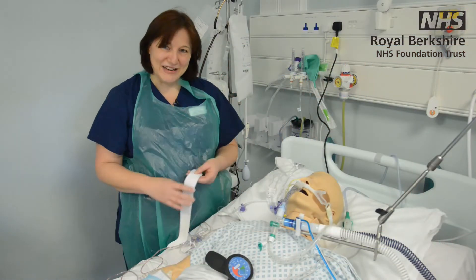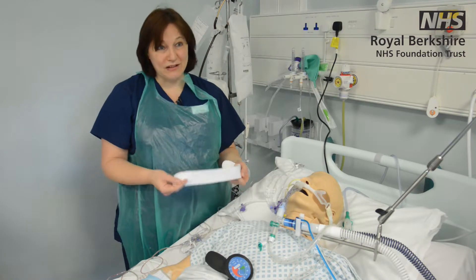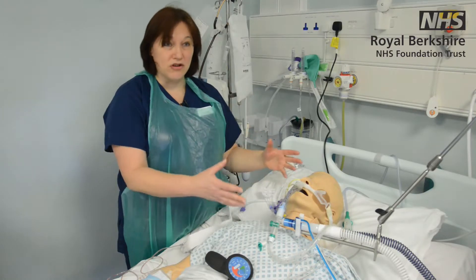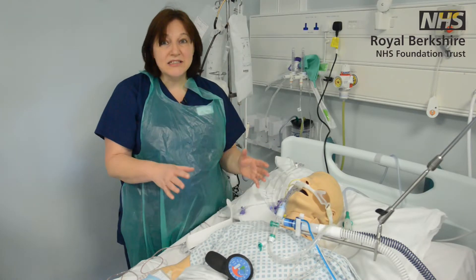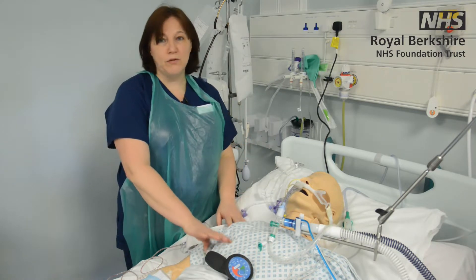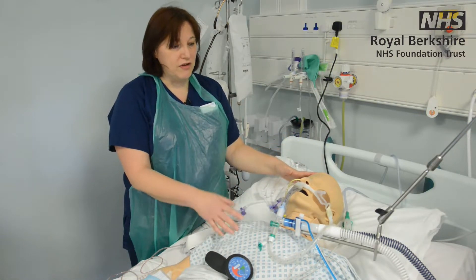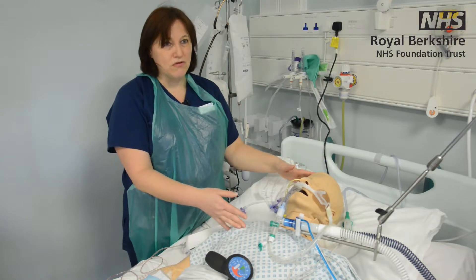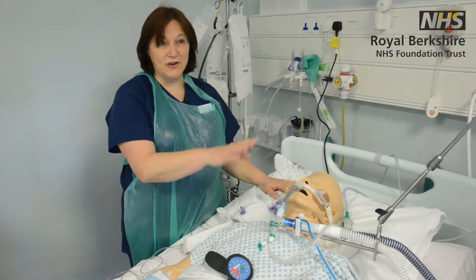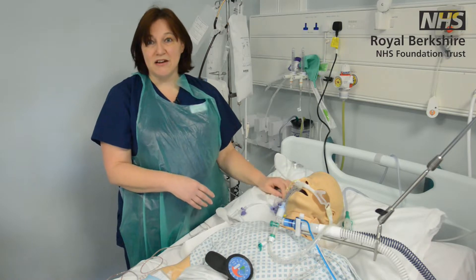Welcome back to our online session. I just wanted to go through some of the lines and tubes that we commonly see in intensive care and break down what you will come across on a patient. Most nurses — ED, recovery, or ward nurses — would be fine from chest downwards, but a lot of you might feel out of your depth or apprehensive about anything chest up and above, because that's where most of our activity happens. So I'm going to talk you through some of the lines and their purpose for the patient.